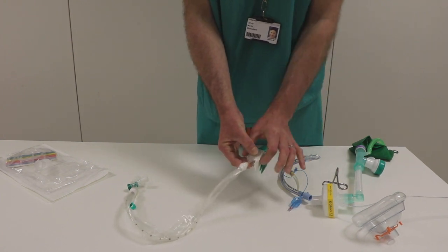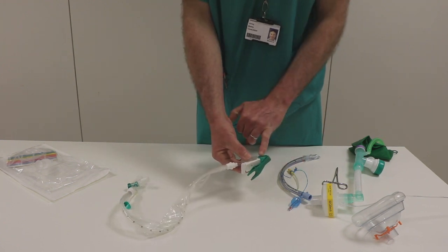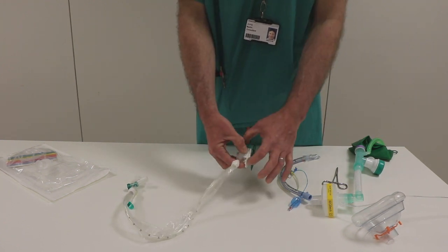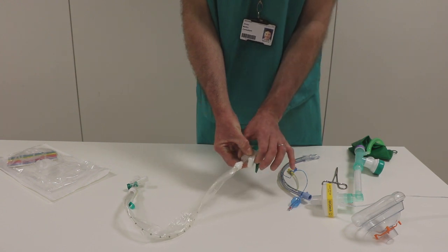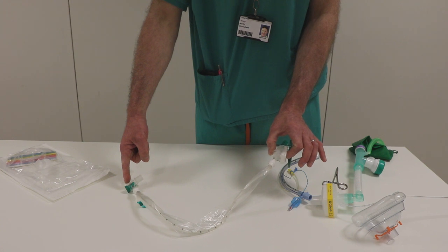When I pull this off and press that down, then air can escape. We've got a cap on there, but that's not to be relied upon, so it's made safe like that and it can't be pressed down — this is closed regardless of whether or not that is open or shut.